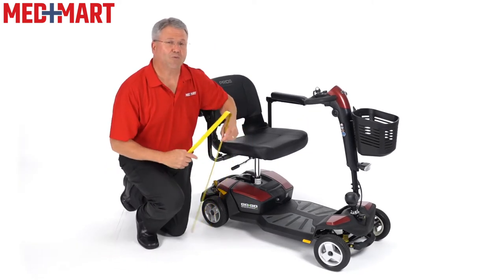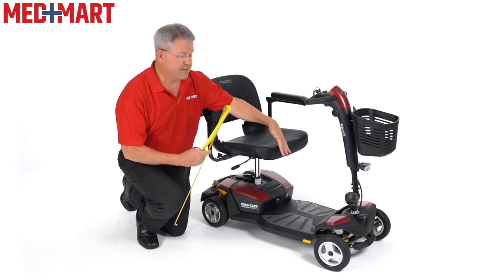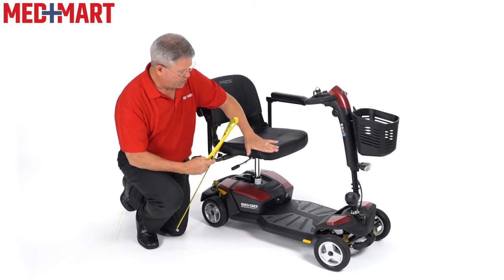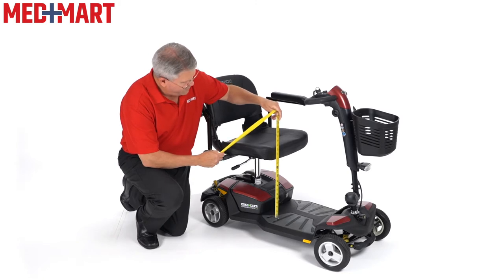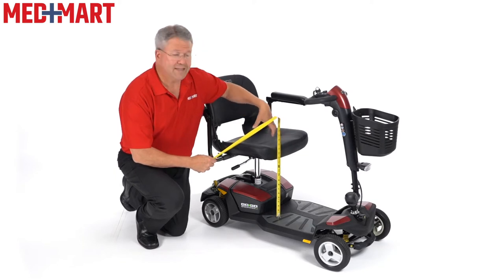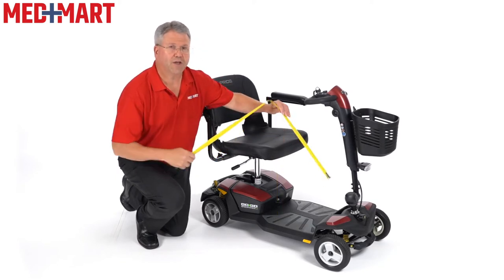Next I'm going to show you how to get a little more height out of the seat. In our setup video you can see how tall I am. Let's say someone's a little bit on the taller side, closer to six foot, or just wants a little extra height to get off and on the chair a little easier. The chair is at about 22 inches from the ground, or from the pedestal itself it's about 16 inches. There's actually a way of setting yourself up in the seat post to get about an extra inch and a half to inch and three-quarters. Let me show you how to do that now.